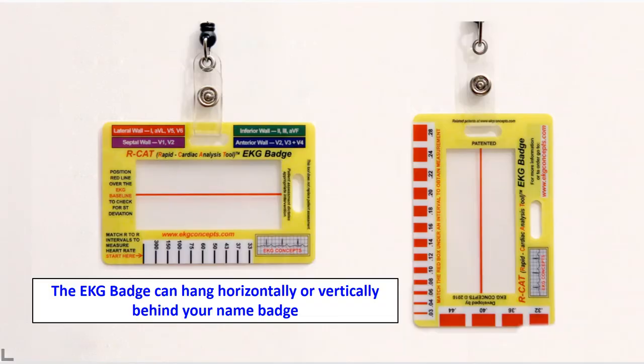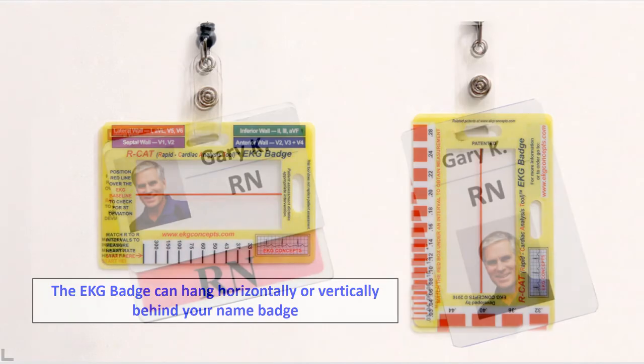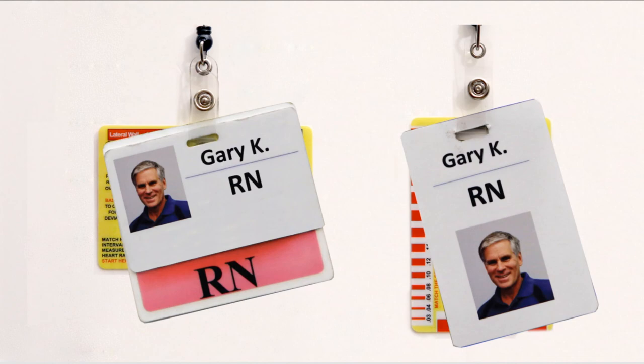The EKG badge can hang horizontally or vertically behind your name badge — it is always available right at your fingertips.